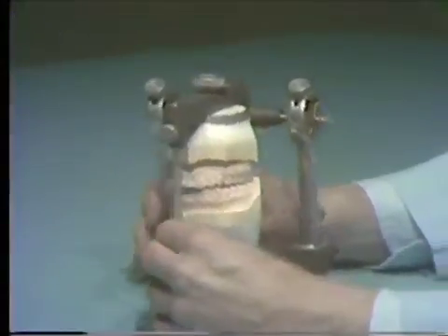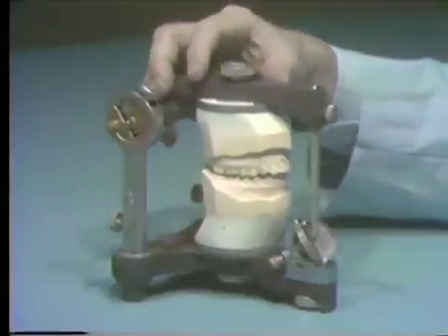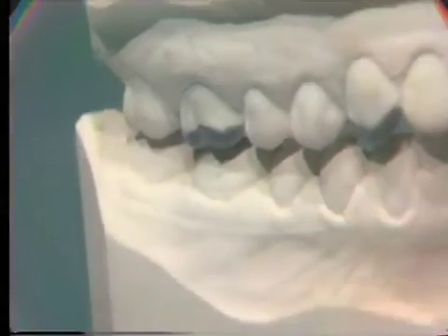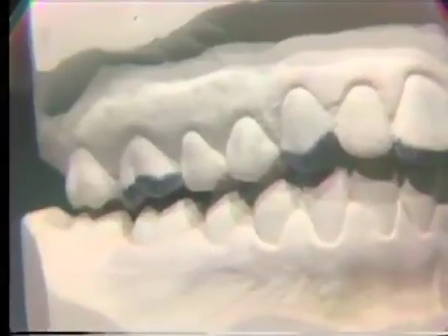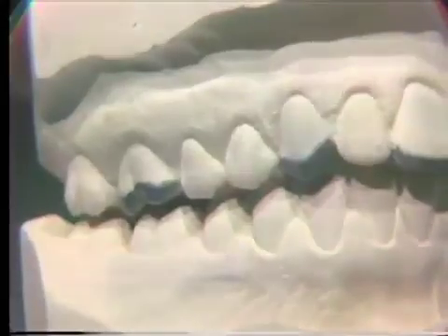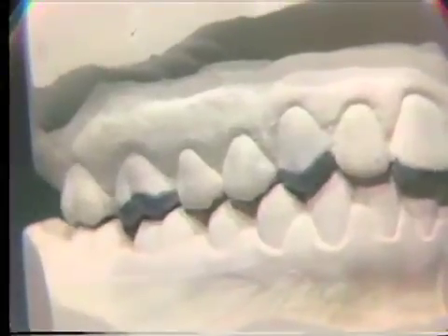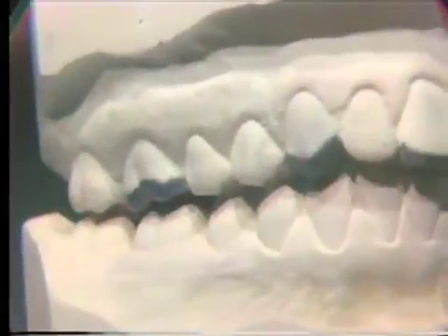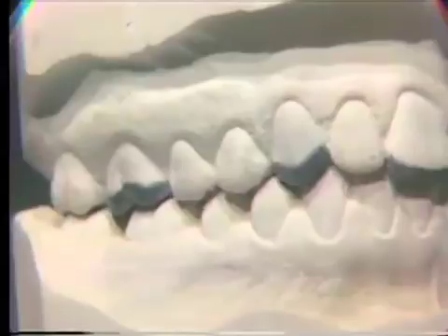With the condylar locks loosened, it is easy to demonstrate the slide in centric. Hold the condylar elements against the condylar stops and close the articulator until light contact is made between the maxillary and mandibular teeth. After stabilizing the upper member in the CRC position, apply pressure straight downward and watch the teeth slide into centric occlusion. Repeat the procedure several times. Notice the space between the teeth in CRC and the normal interdigitation of the teeth in centric occlusion.